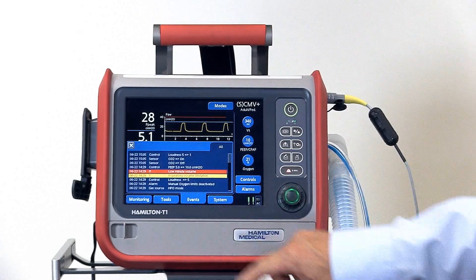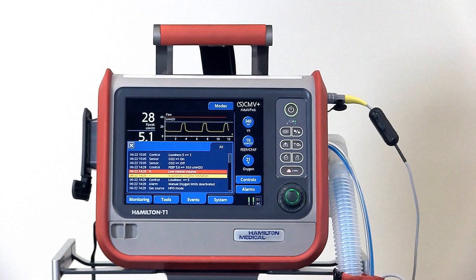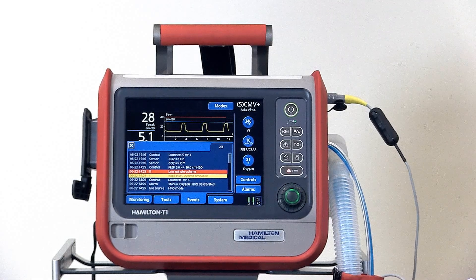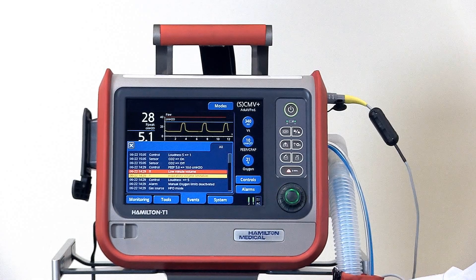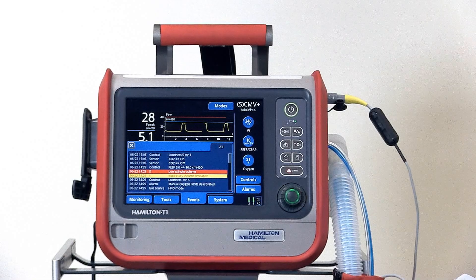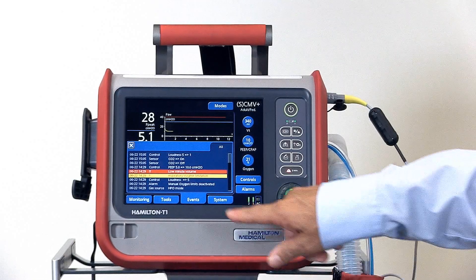The next tab over is called Events. This is the log book, so to speak, of recent ventilator events including setting changes and alarm messages.